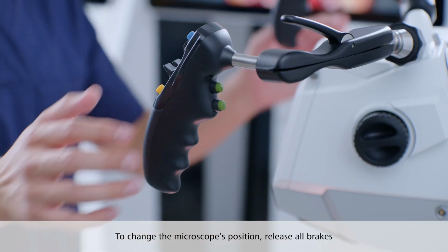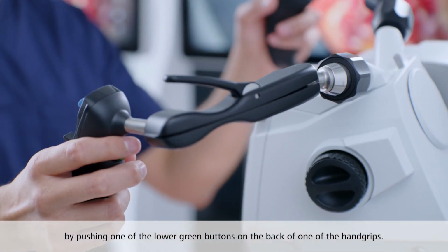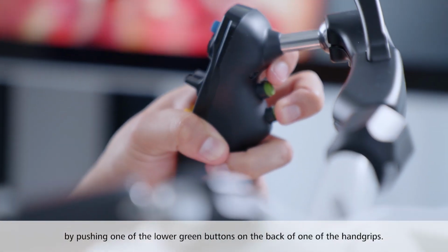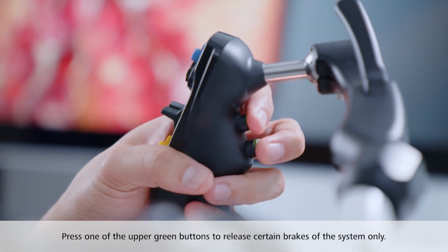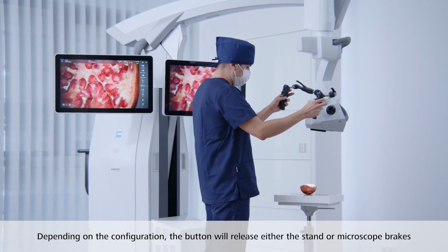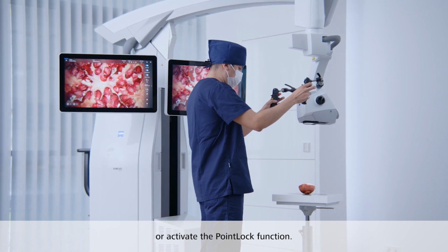To change the microscope's position, release all brakes by pushing one of the lower green buttons on the back of one of the hand grips. Press one of the upper green buttons to release certain brakes of the system only. Depending on the configuration, the button will release either the stand or microscope brakes or activate the point lock function.